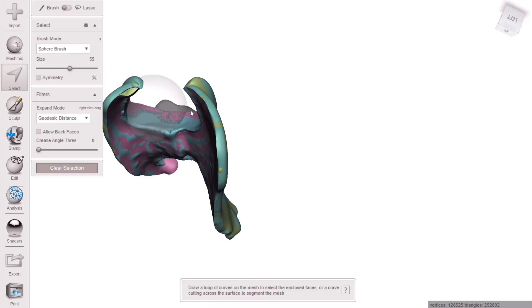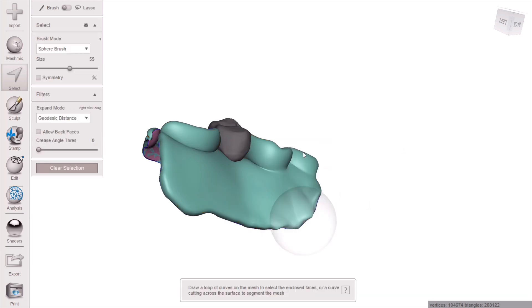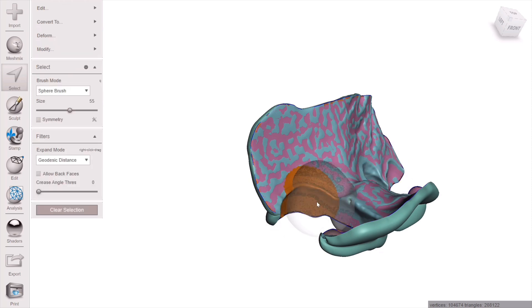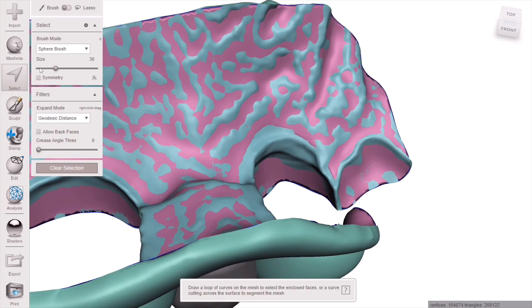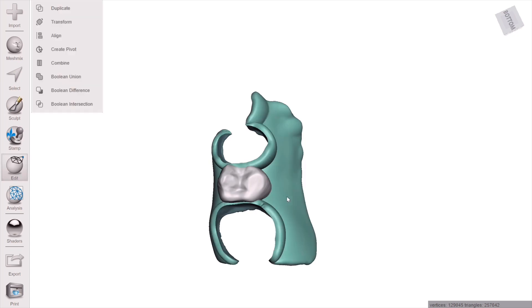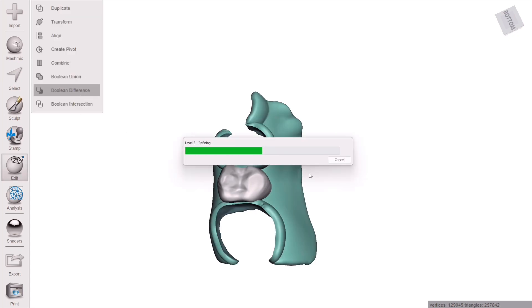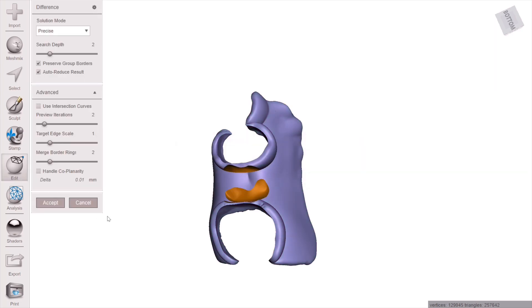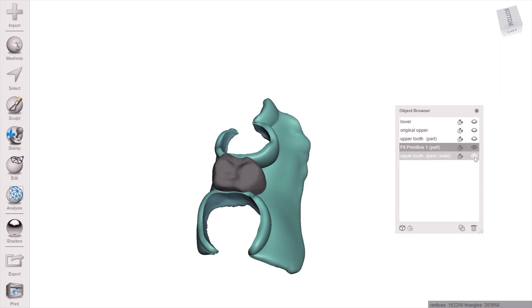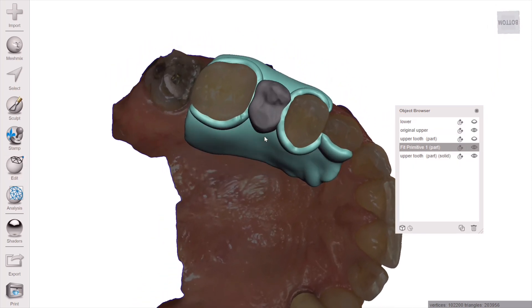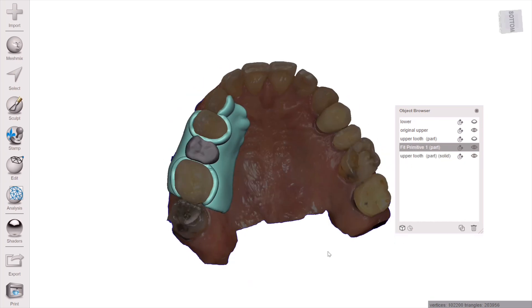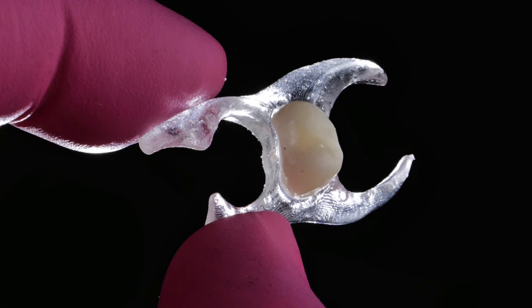You may need to make your framework solid for this to work. Make the offset tooth solid. Then go to your framework — there are meshes within meshes, so delete the outer mesh by selecting one of those colors and hitting Delete. On the intaglio surface there are also two meshes; pick the block out mesh — the pink one — double-click it and delete it. Now you have one unified mesh with no other colors. Select your frame, then select the offset tooth, hit Boolean Difference, and hit Accept. You now have a perfect slot cut for that tooth to fit into. Print the tooth in tooth material and the frame in frame material — something like a retainer material. I hope this helps!